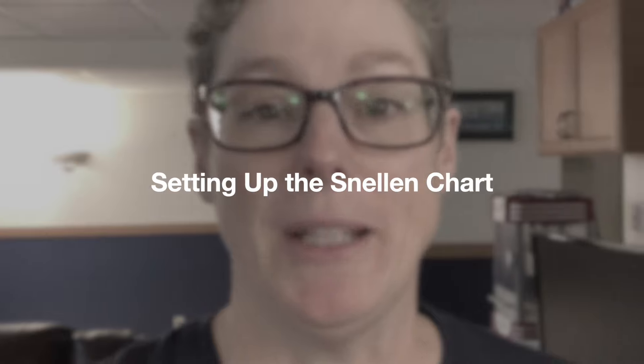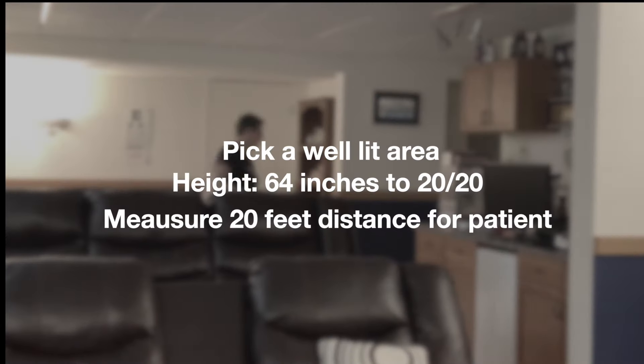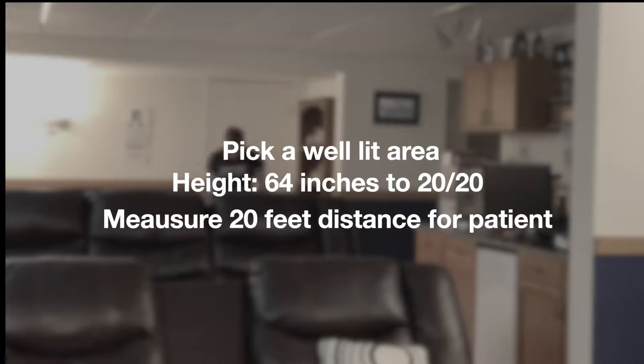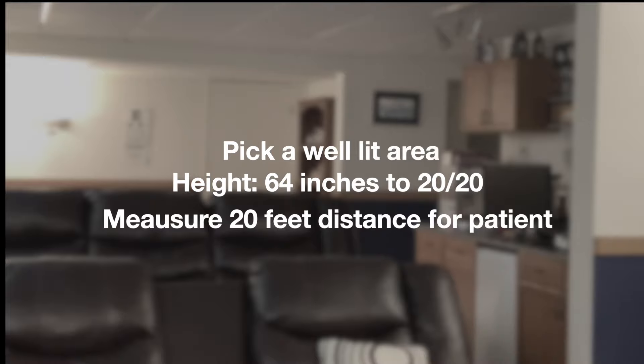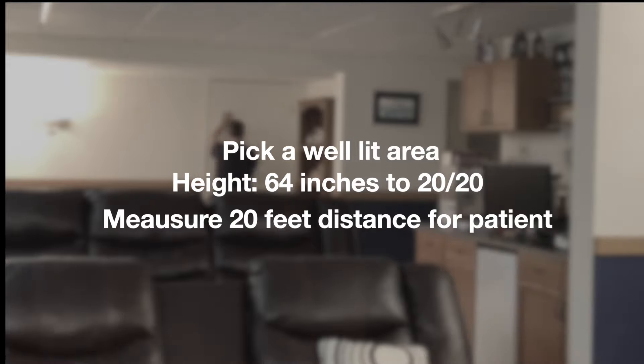To establish a place to put your Snellen chart you need to have 20 feet — we've come down into the basement here to set this up. You want to pick a well-lit area. The height of the Snellen chart is 64 inches to the 20-20 line, and you want to measure 20 feet back for your patient to stand.